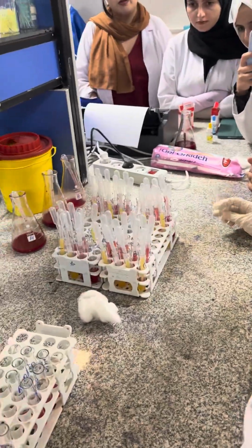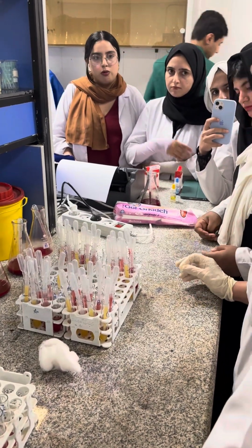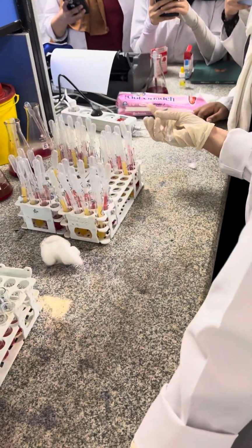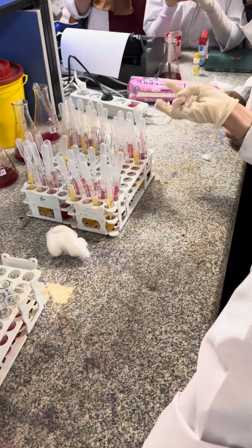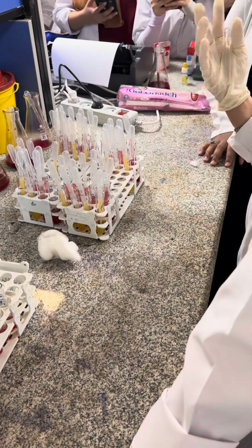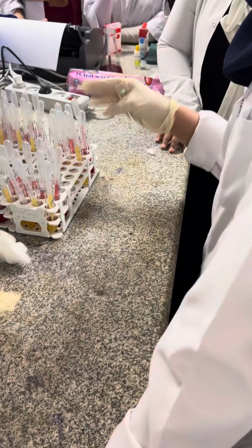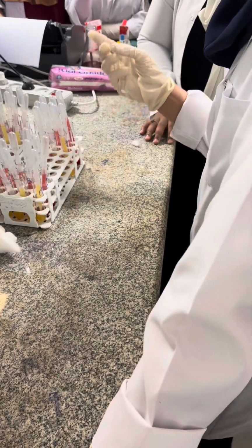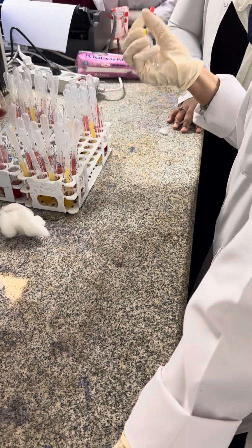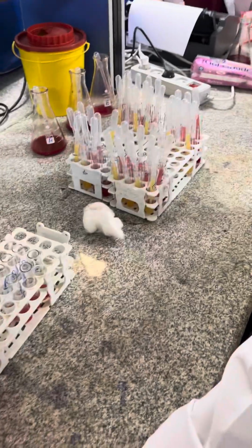In your exam, every person has 3 tests. Randomly, we put 3 tests for each of you. Maybe blood group; we have 4 tests. And randomly, everybody has 3 tests. One of them maybe is blood group typing, another one is cross-match test, another one ASO and Wright. These 4 tests. Randomly, you must answer 3 questions.